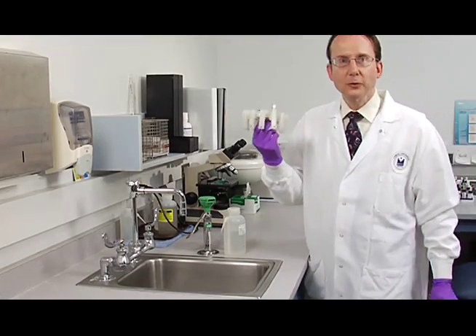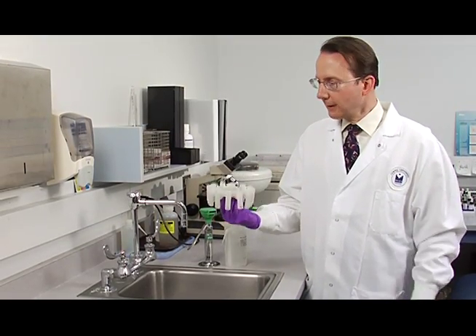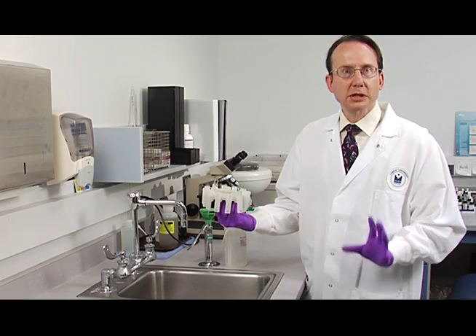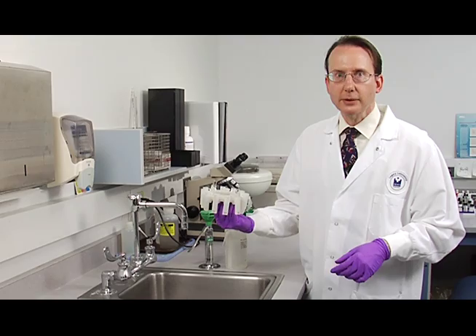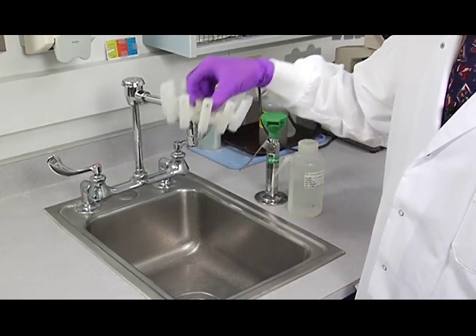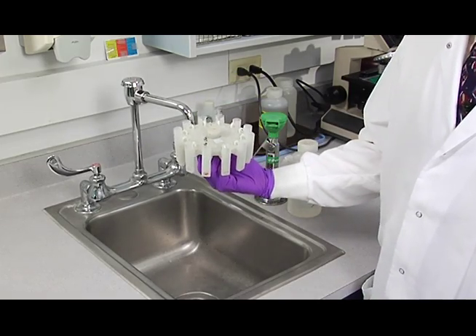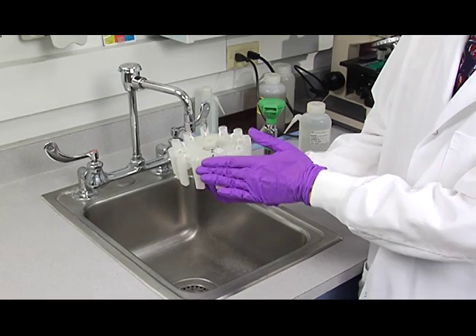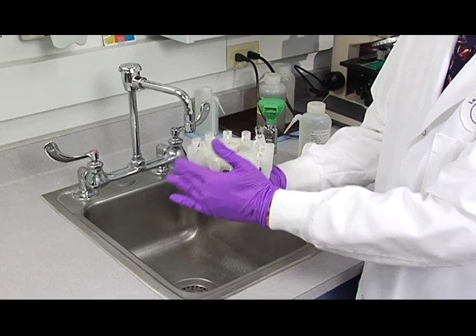So after the fourth wash, the final decant, you want to drain the tubes, and then you're going to shake several times to get as much of the saline out as you can. And get all the saline out. Then you can re-suspend your buttons like this again.